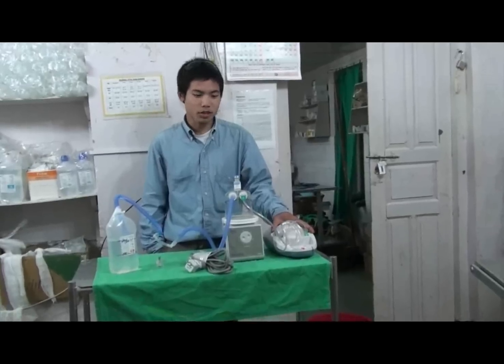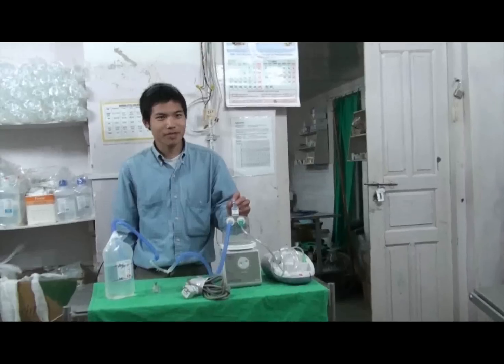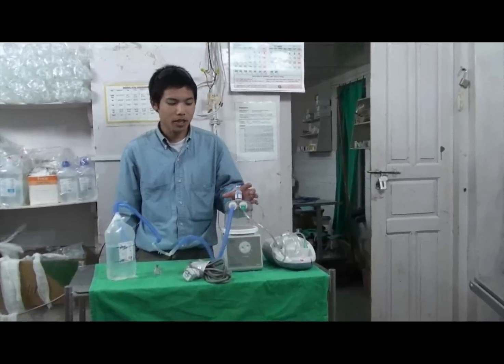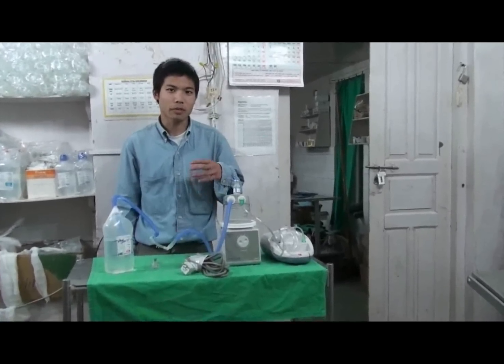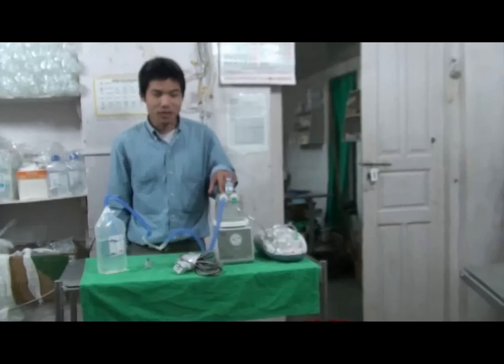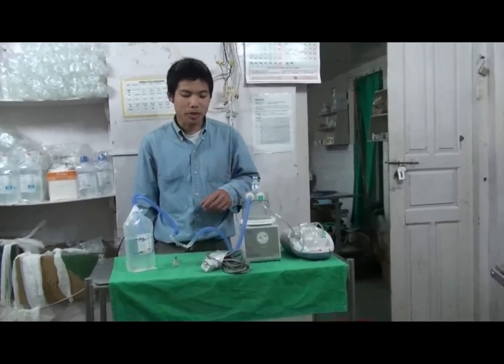We're using this nebulizer as our driver. It will go to a humidifier that will humidify the gas for the baby. We're only using sterile water, just to make sure that we don't get sedimentation at the bottom of the pot, and also to treat the air and humidify it — providing warm, moist, humidified air for the babies because of their fragile airways and also their inability to maintain heat, especially if they're compromised by being premature.